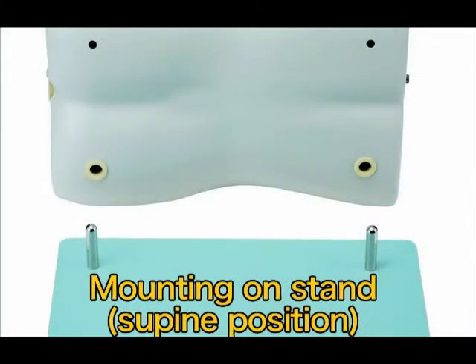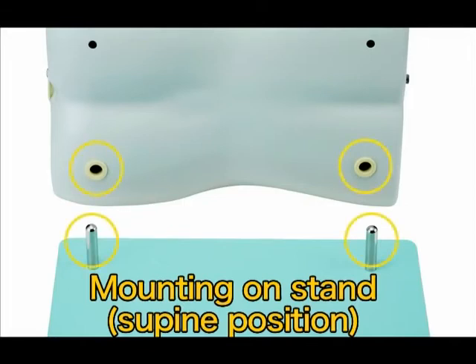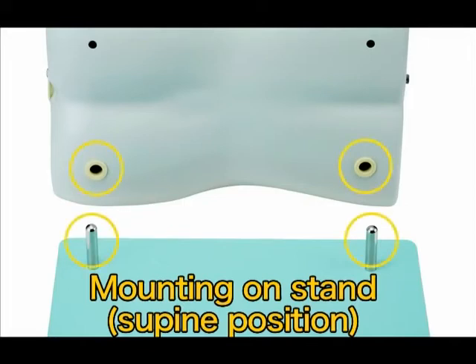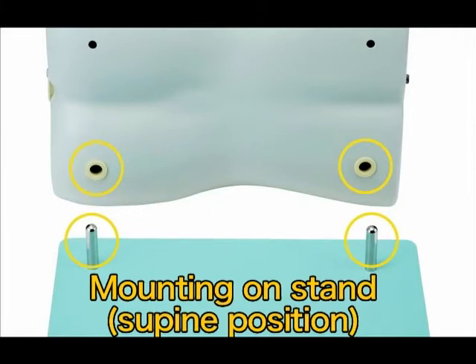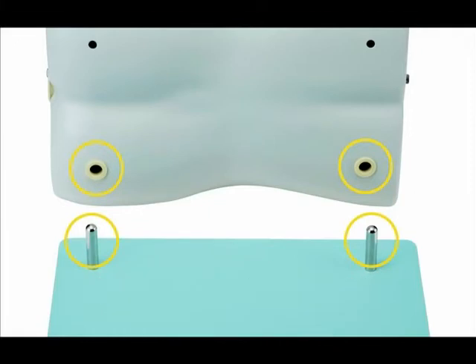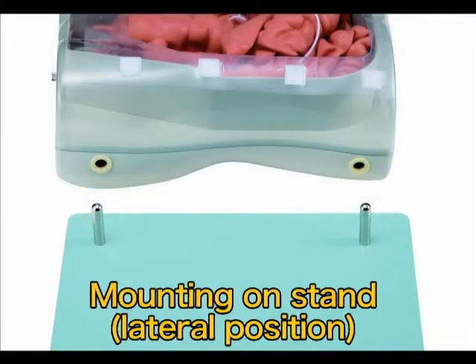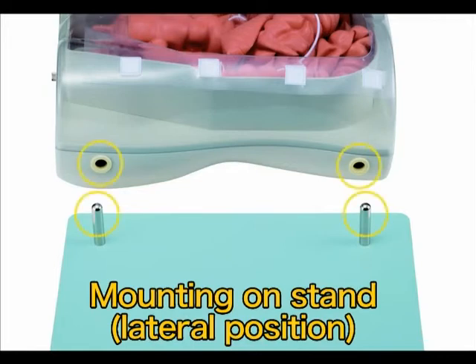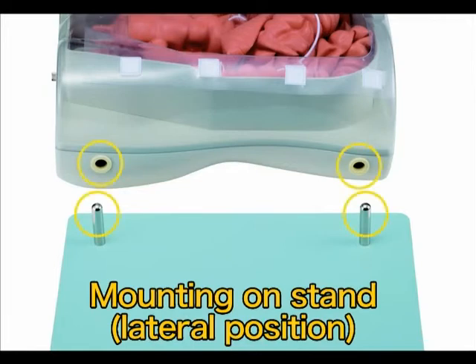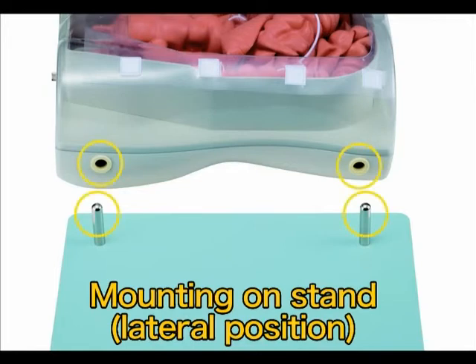When putting the simulator in the supine position, align the two pins on the stand with the holes in the underside of the main body. When putting the simulator in the lateral position, align the two pins on the stand with the holes in the side of the main body.